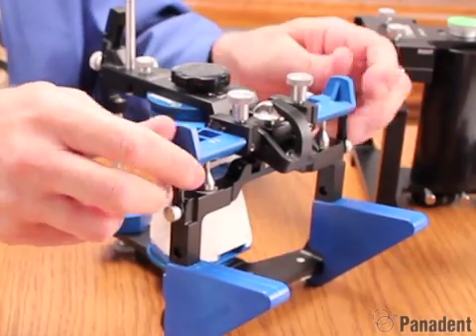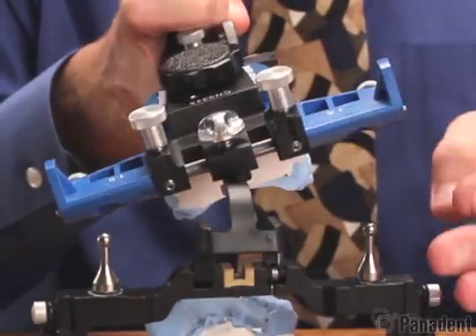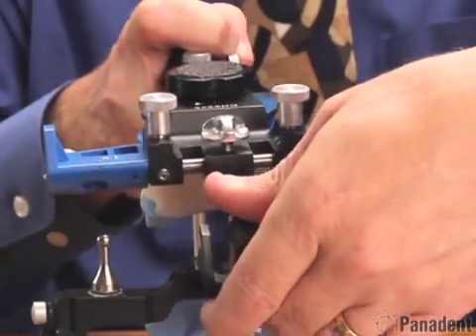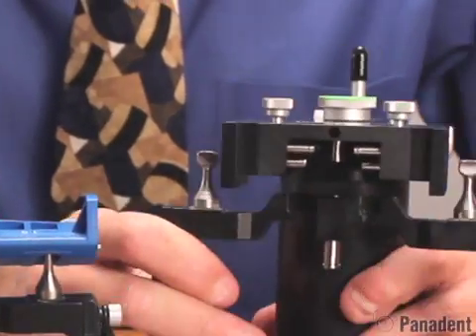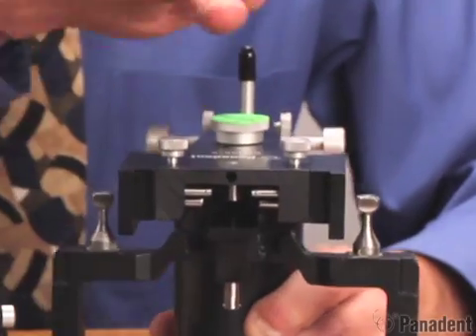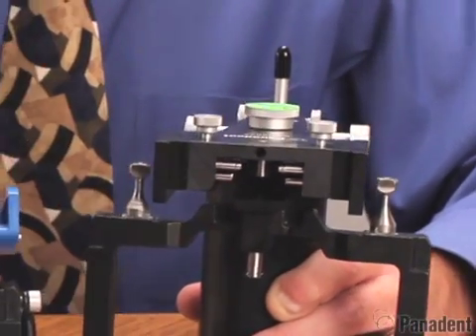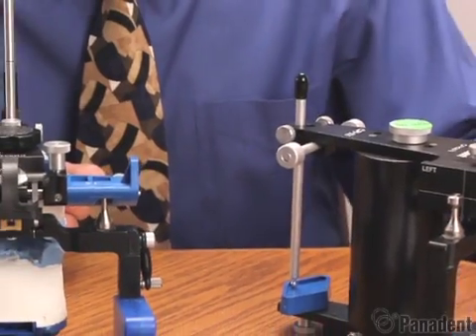So if we actually have a tilt in the axis from CO to CR, this pin will come down at an angulation indexing a horizontal deviation when there may or may not be one. With the CPI system, we have a table that will come up to the axis point, so if we have a tilt in the axis from CO to CR, we won't indicate a horizontal deviation until one actually occurs. Otherwise, the systems are somewhat basically the same.